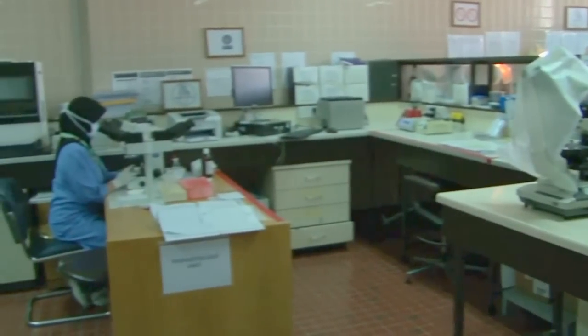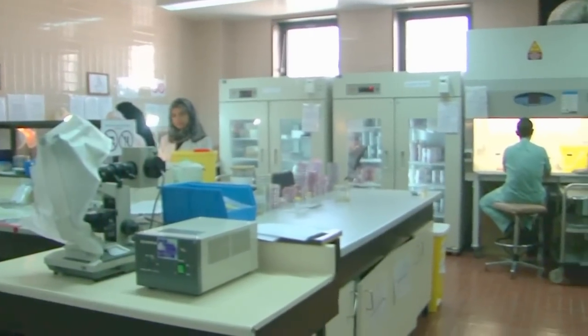We have microbiology, and we have the pure bacterial section. If you start from the bacterial section here, there we'll collect the samples. Usually samples can be urine, swabs, sputum, or blood for culture. All this can be sent for culture. We use culture plates, commonly nutrient agar and blood agar, and MacConkey agar for gram negative.